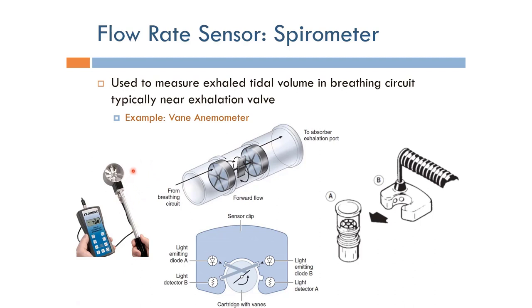Whenever the breathing air goes through this, the vanes cause it to rotate. Whenever this piece here rotates, we put a clip that looks like this on the outside of this device.